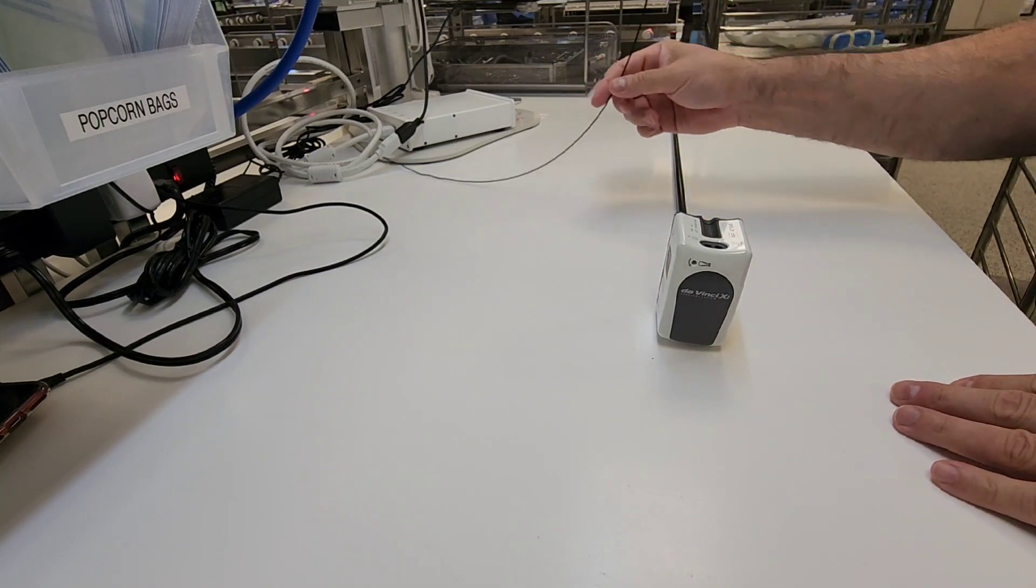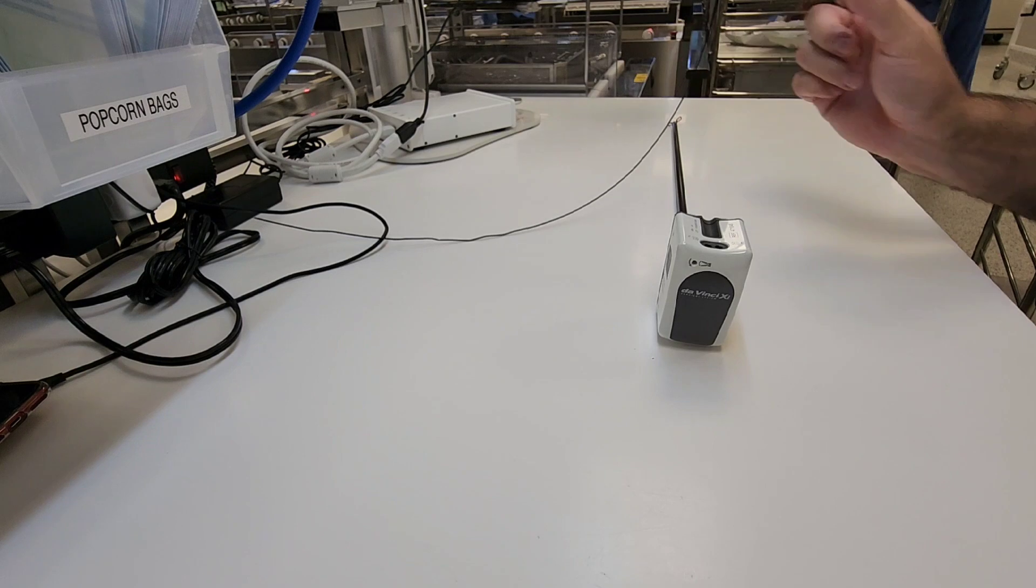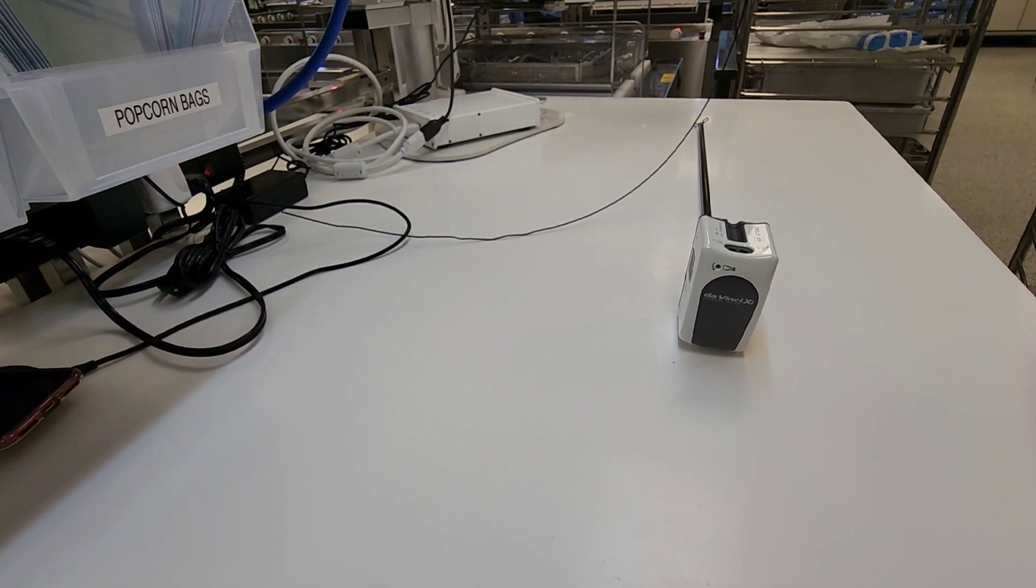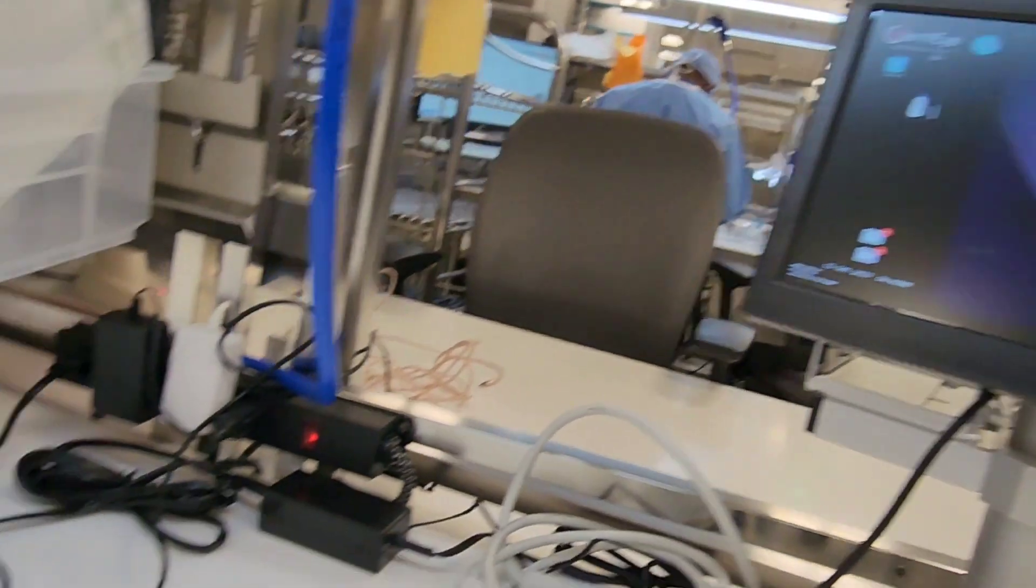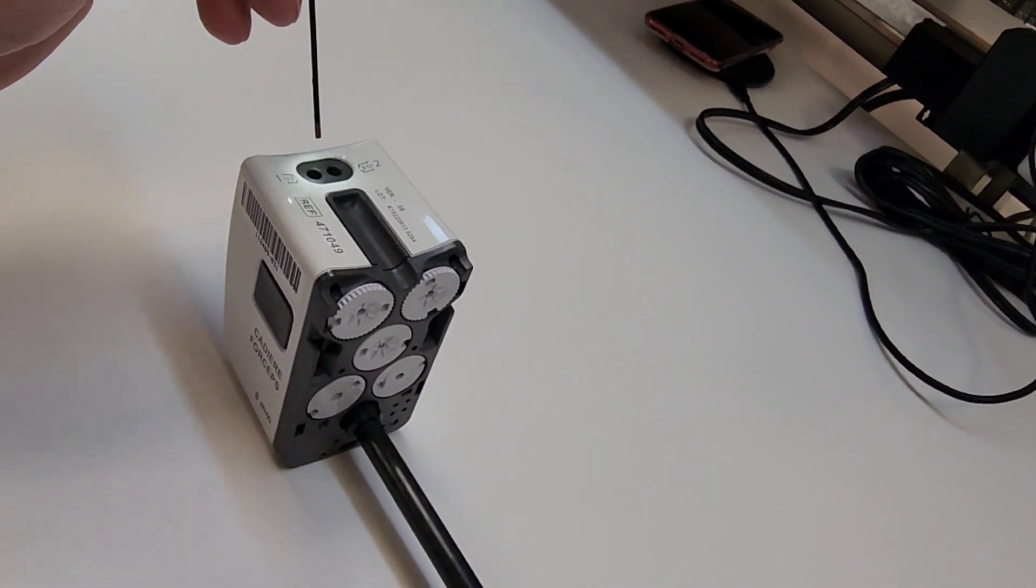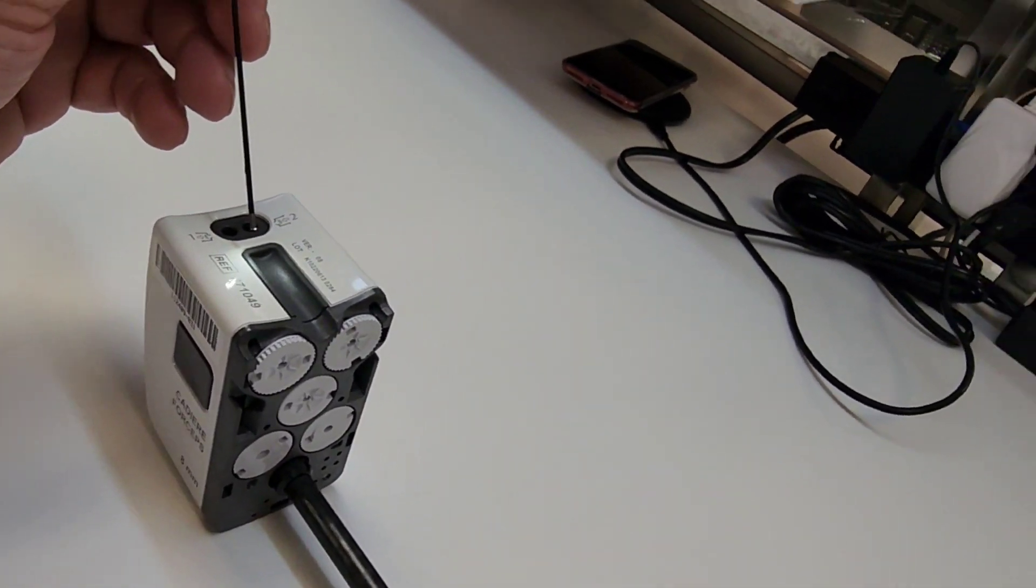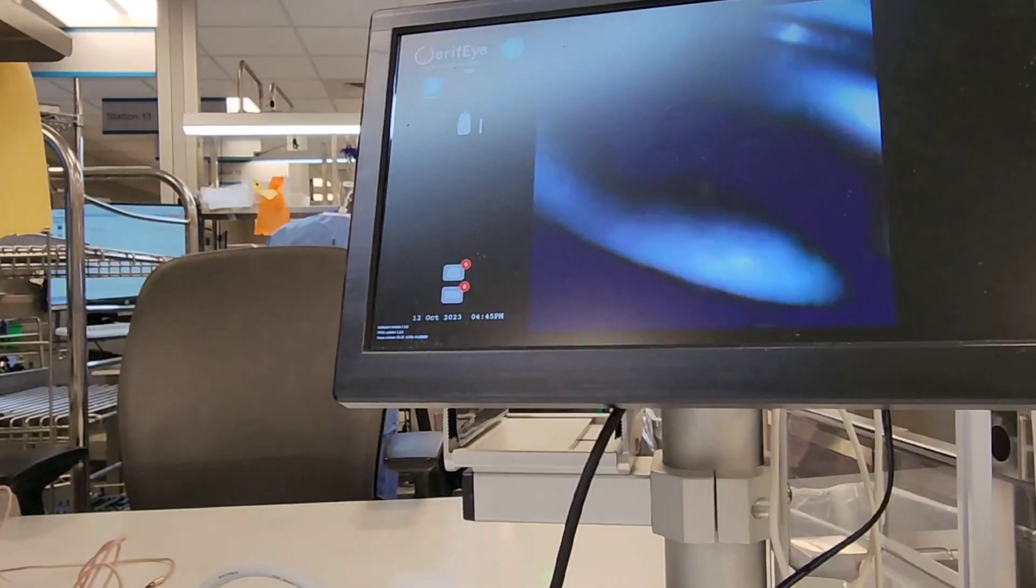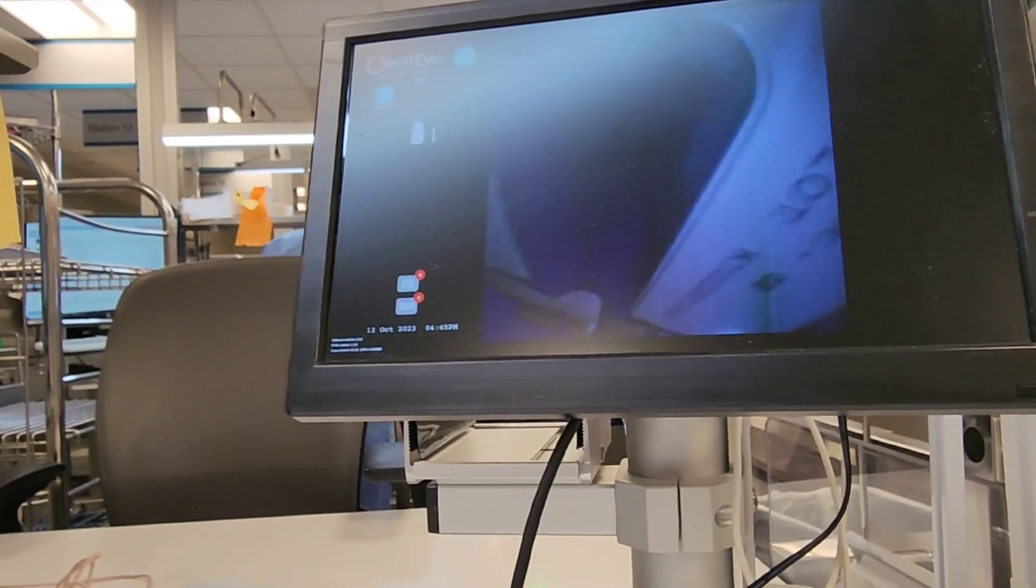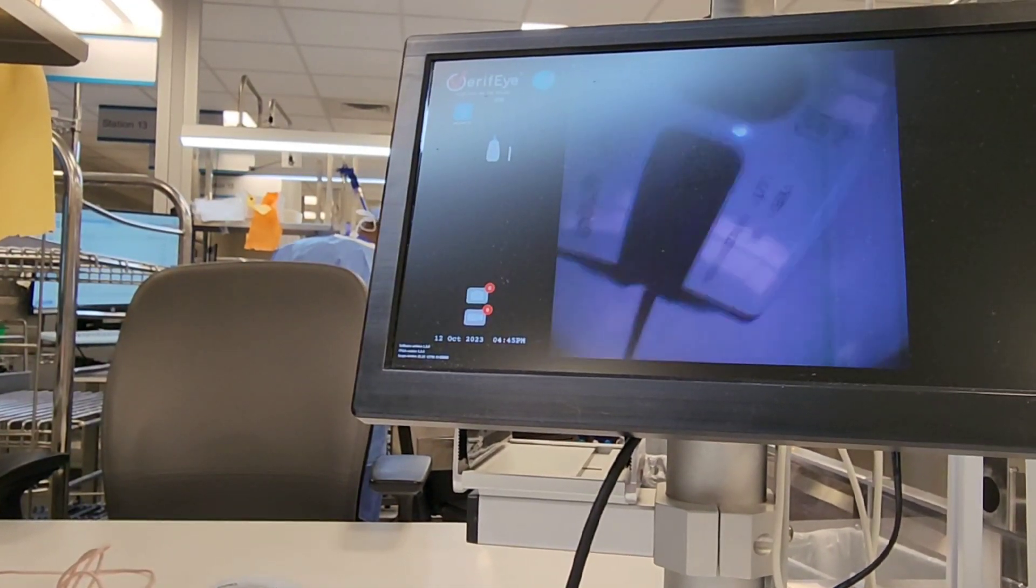But drying, as I stated before, should be done in decontamination, so you shouldn't see this instrument dripping wet coming to you at the inspection station. You want to inspect for cleanliness, and there's several ways you can do that - you can do a verification for cleanliness test, verify it with a cleaning tool, or use a boroscope to go down the cannula.